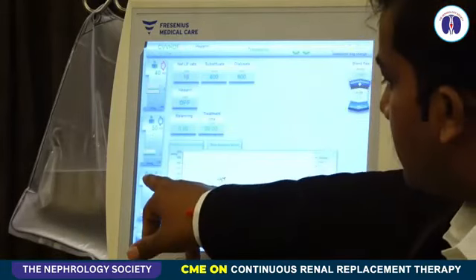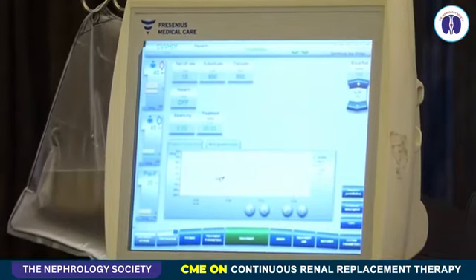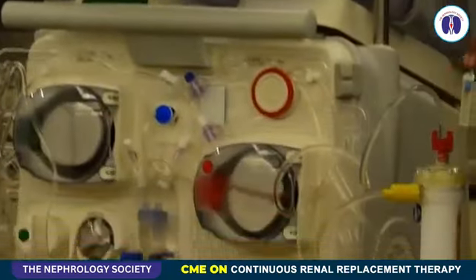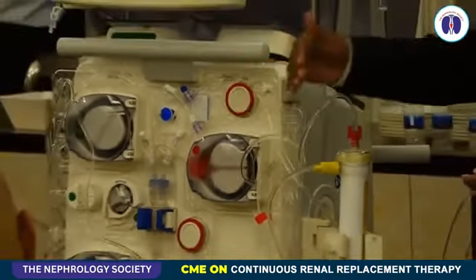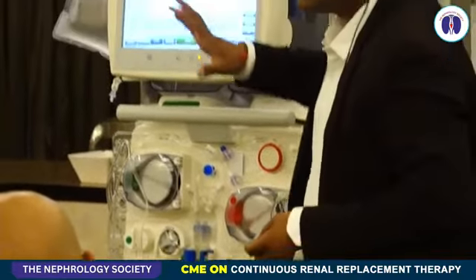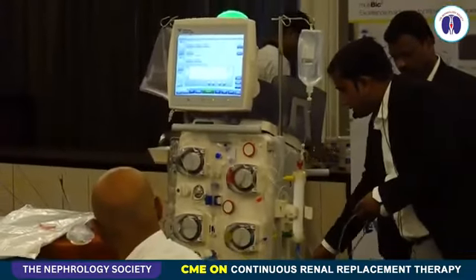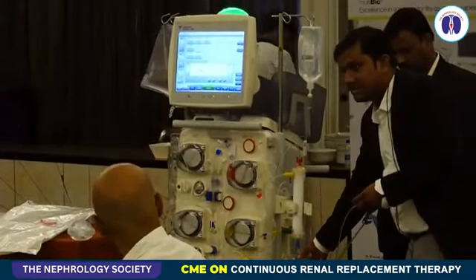And the third one is pre-filter pressure. Pre-filter pressure is measured from this dome. Anything that leads to a higher pressure before the filter will reflect in the pre-filter pressure. It can be a kink or clot in the venous header like this.